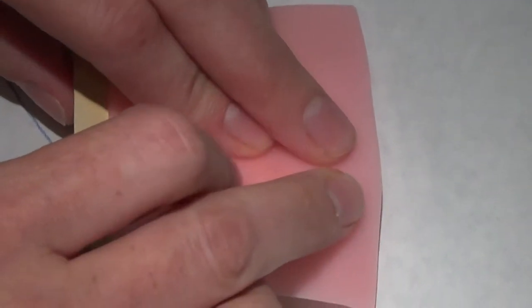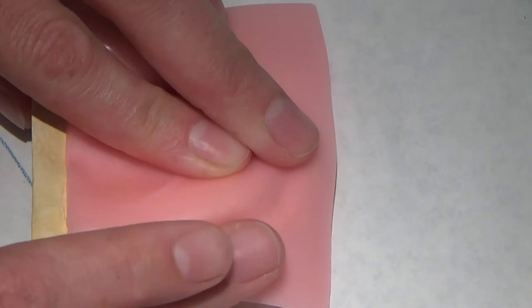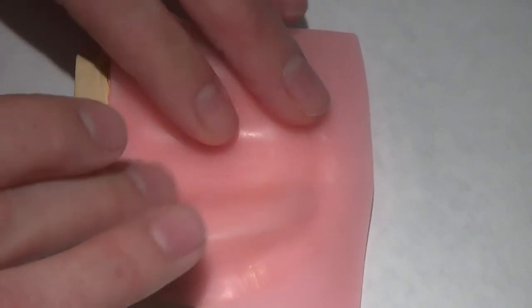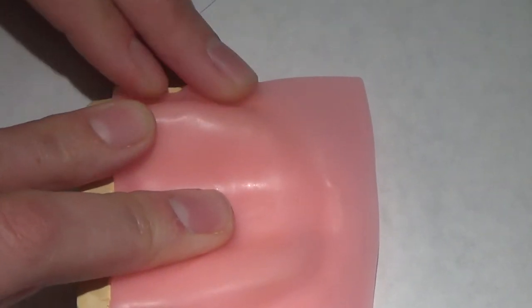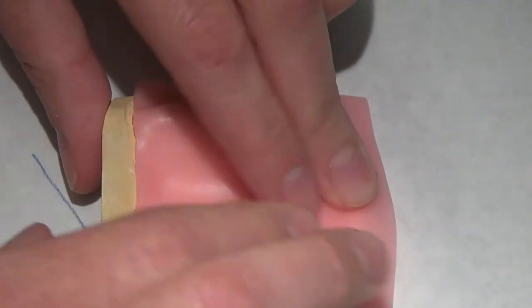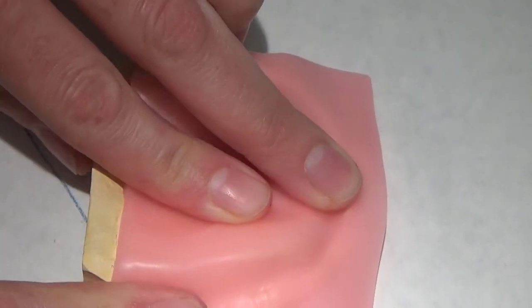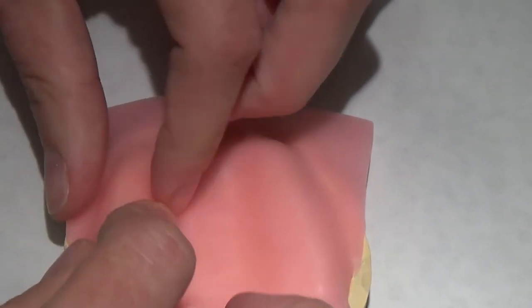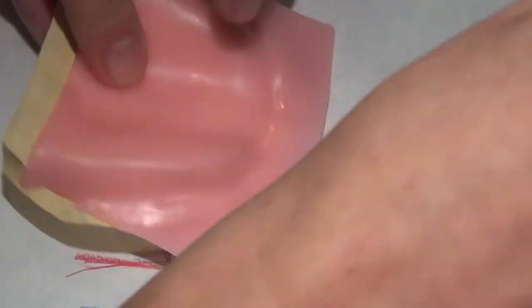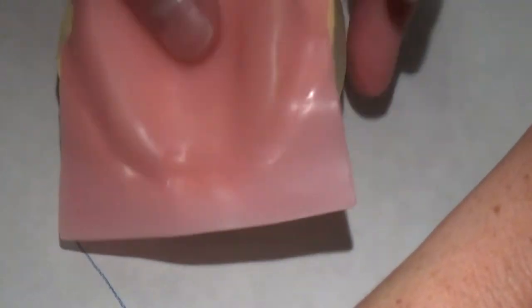And the more you do this, the better you'll get at knowing what size of wax you need, how much pressure to put on the wax to get it to adhere to the cast. Once I'm happy with that, I'm going to come back and trim it away.